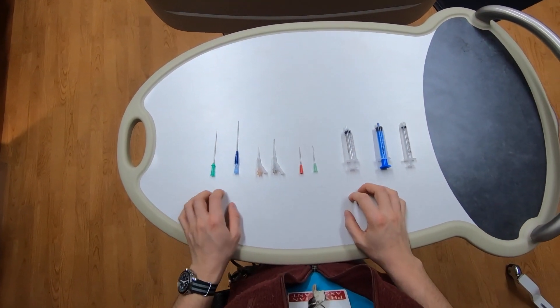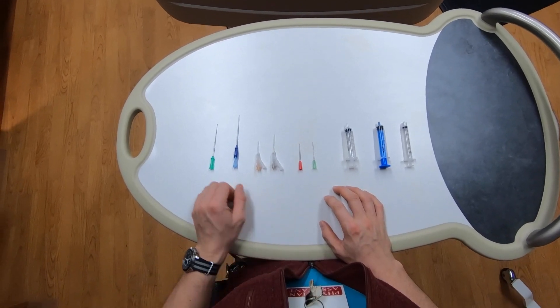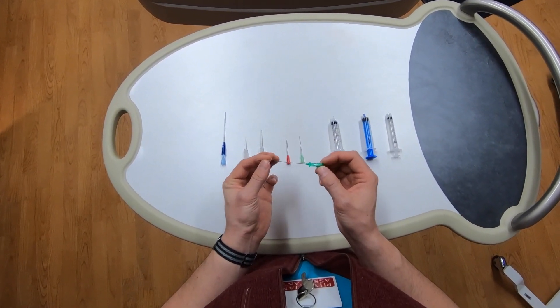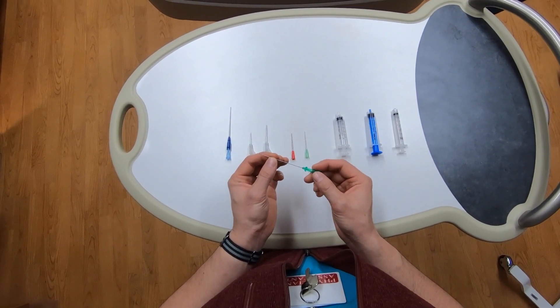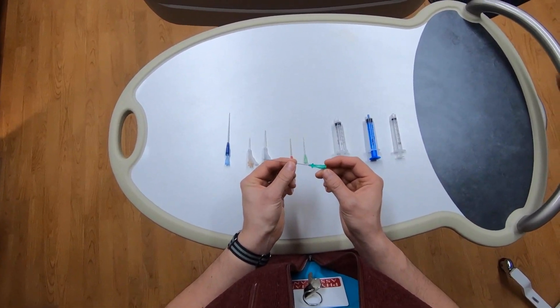Let's take a few minutes to review some of the needles and syringes you'll find in a typical central line kit. To start off, we have the most basic, which is the thin-walled introducer needle. It's simply a needle through which your guide wire will pass. It often has a slightly hashed tip, which makes it more echogenic on ultrasound.